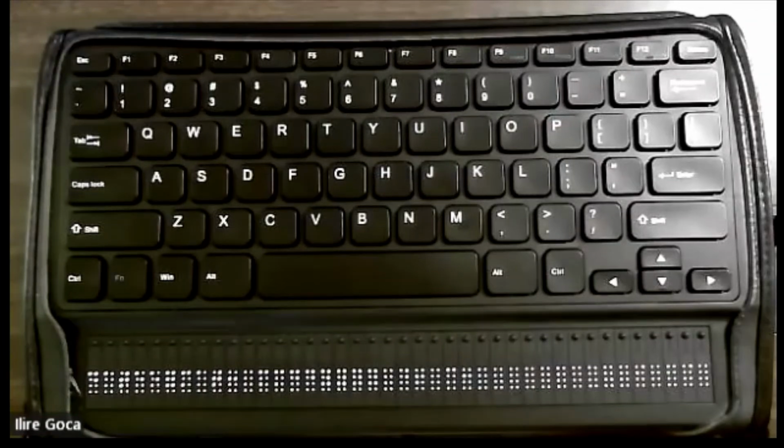In order to quickly check the time from anywhere on the Mantis, either use the command Control with Alt with T or Control with Function with T. In order to quickly check the date from anywhere on the Mantis, either use the command Control with Alt with D or Control with Function with D.